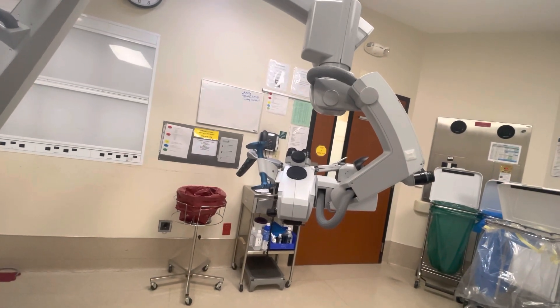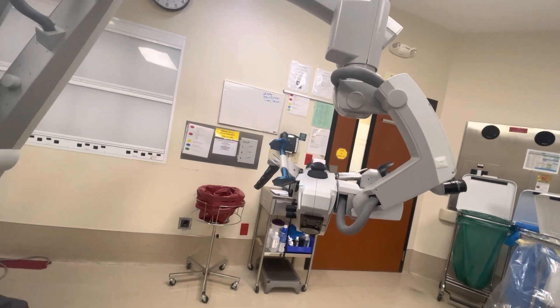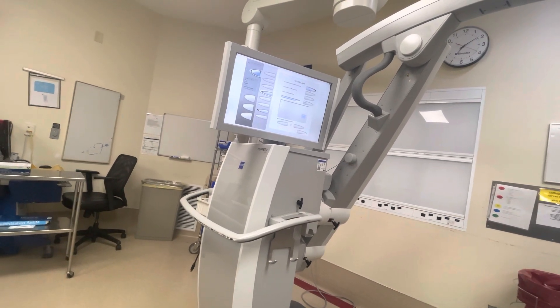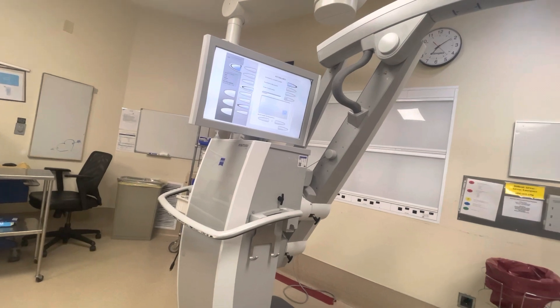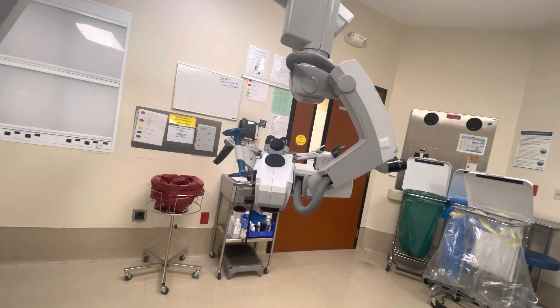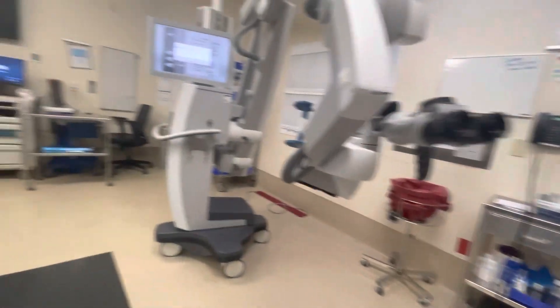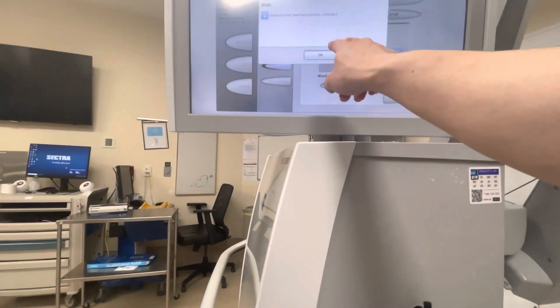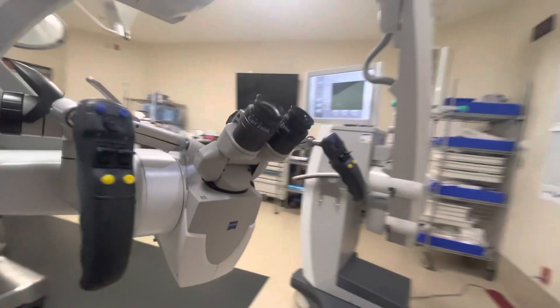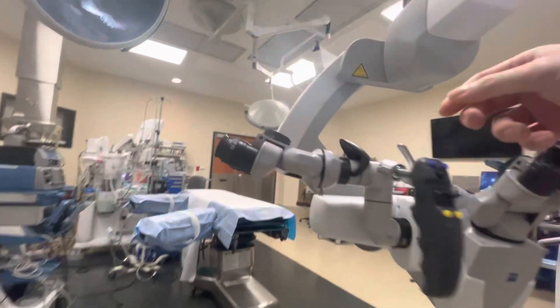Main things to remember: make sure the observer port is on the correct side of the arm. I remember the first time I was in an otology case, the attending said I wasn't going to see anything because I didn't move it to the right side. The auto-balance takes about a minute to move around — don't touch it while it's doing its thing. Go ahead and fold up the entire microscope, press OK that you're done, push the arm back in so it doesn't take up too much room, push it towards the side of the room until the patient's in, and have fun with your case.